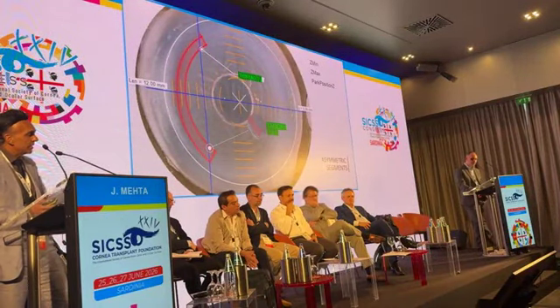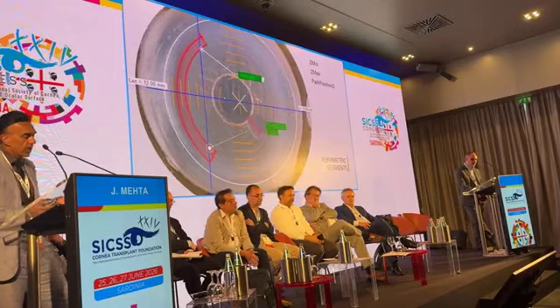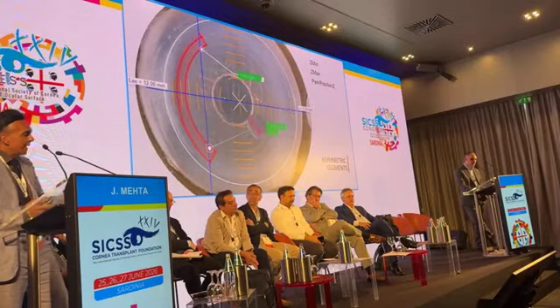Of course, if you do cut multiple segments, this has to be done in the eye bank and then tracked from the eye bank out to the surgeon. Essentially, this is how it cuts on the surface. And it's completely customizable, so you can customize a thick end, a thin end. Here you can see a difference of 550 microns on one side up to 750 microns on the other side itself. So you can go back, look at your tomography pattern from your patient to give you an idea of how to cut the segment itself.